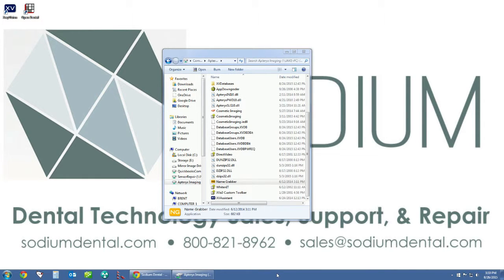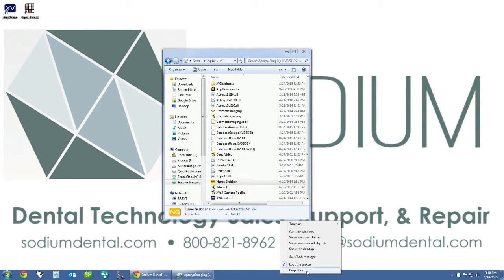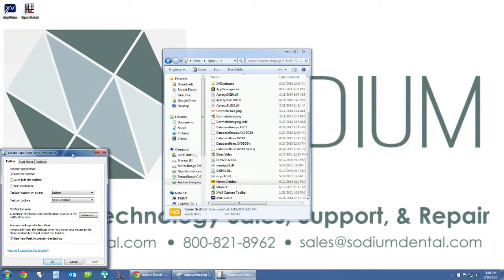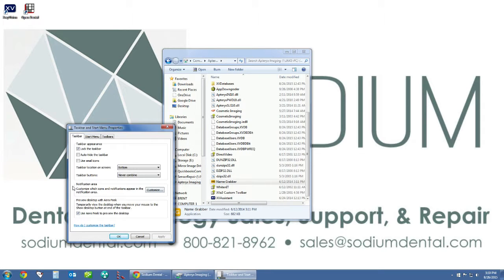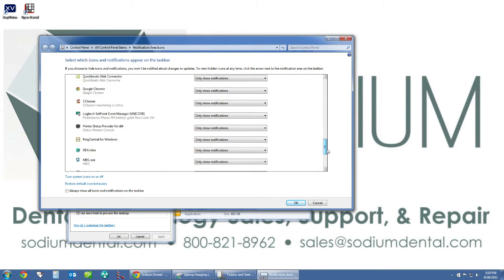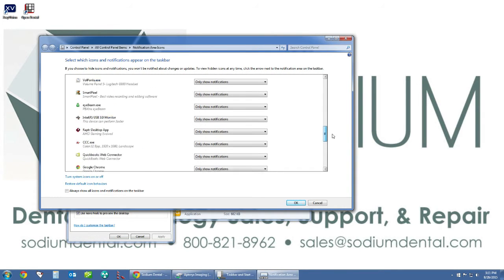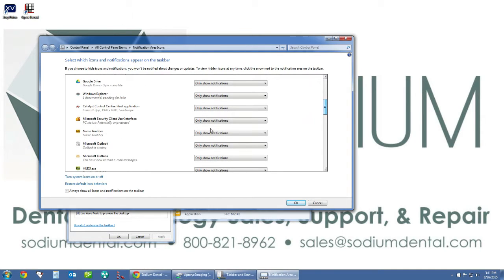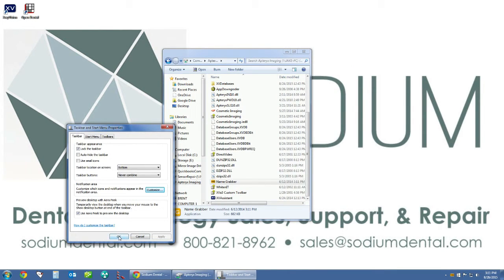To do this is really simple. All we have to do is put our mouse over the Windows taskbar, right click, and then click on Properties. Under Properties, in the center we see the Notification Area — we will click on Customize. This will open up an additional menu showing all of the icons that at one time or another will show up in our Windows taskbar. We need to scroll through and look for our name grabber icon, then go to the drop down box and click on Show icon and notifications, and hit OK. Once we have done this, click OK.